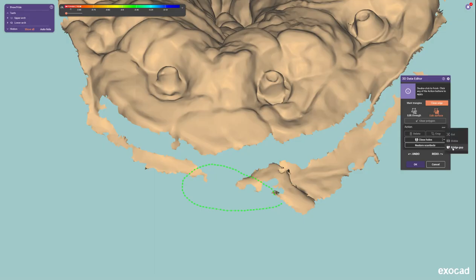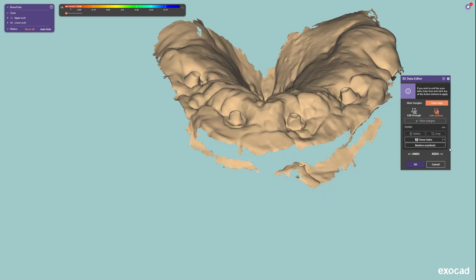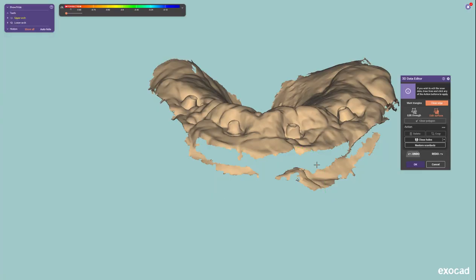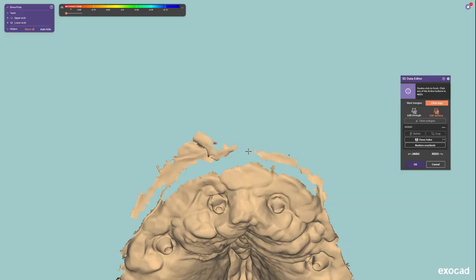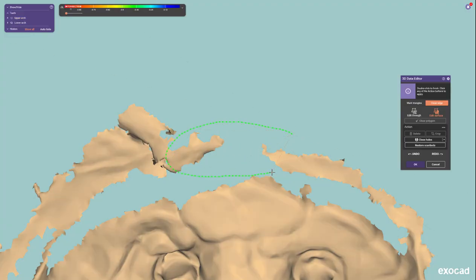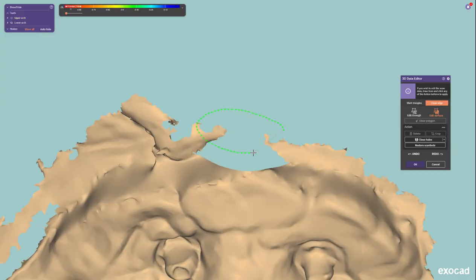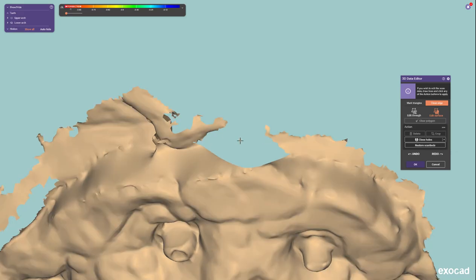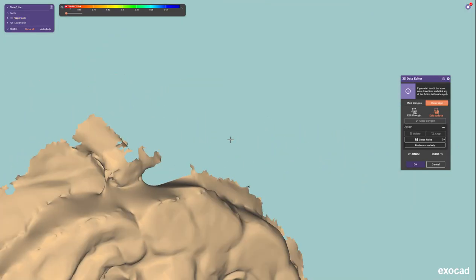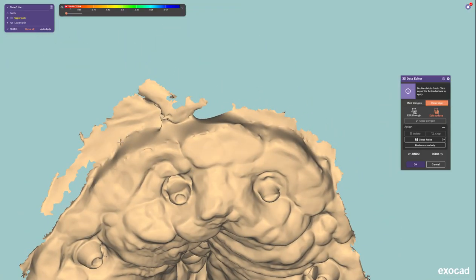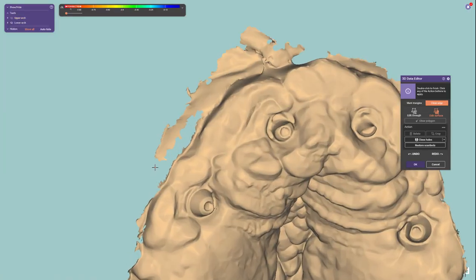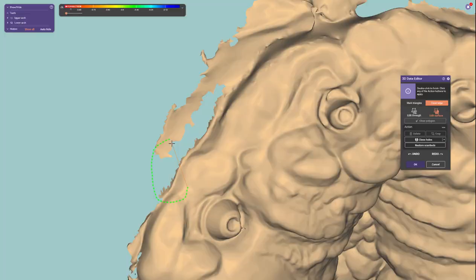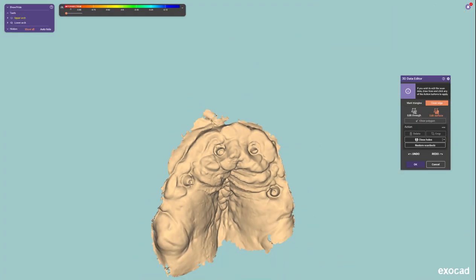Let me try this area and then go to bridge gap. Maybe let's go like this. There you go. Then bridge gap again. There you go, and then you kind of close that like so, then go bridge gap. There we go, that's how you do it.